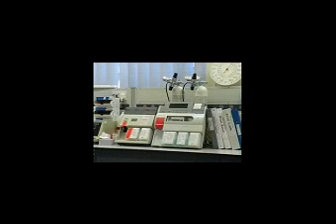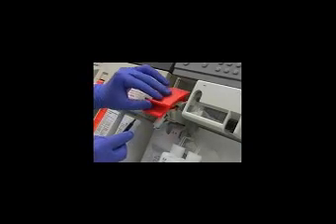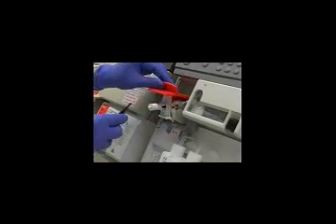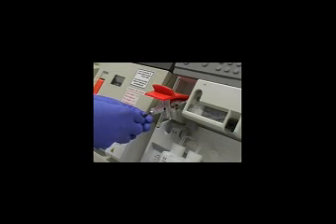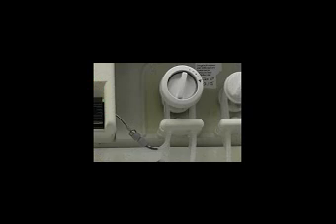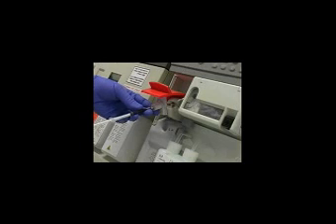The pH of the blood is often required to be monitored in acutely ill patients. Equipment which allows for the pH monitoring of blood, and at the same time measures relative oxygen and carbon dioxide levels, are described as blood gas analysers.